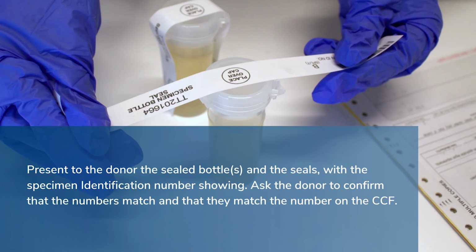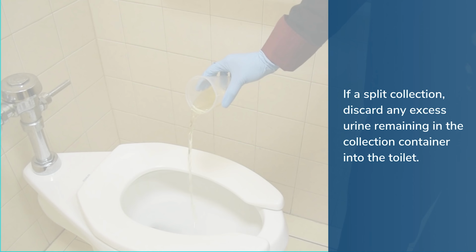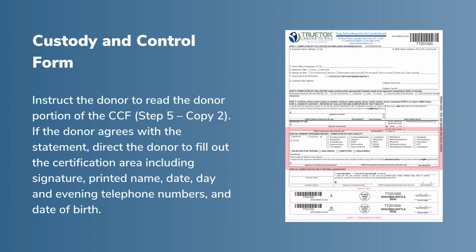Present to the donor the sealed bottles and the seals, with the specimen identification number showing. Ask the donor to confirm that the numbers match, and that they match the number on the CCF. Date each of the tamper-evident seals on the bottles. Ask the donor to initial the seals. If the donor refuses to initial, note that on the remarks line in Step 2 on the CCF and continue the collection process. If a split collection, discard any excess urine remaining in the collection container into the toilet.